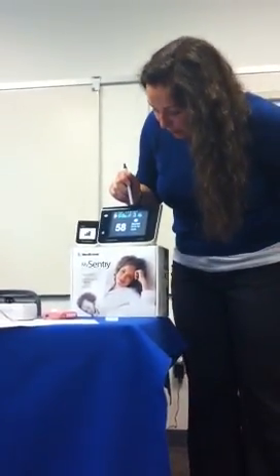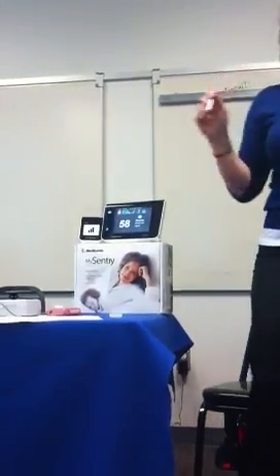This first one, what it will actually show is the hours until your next calibration, and that also goes in colors of green, yellow, and red. So it'll say, okay, we have 4 hours until that next sensor calibration is due. This can be really helpful, especially at night. Say, I want to make sure that I calibrate before bed because I don't want to get an alarm in the middle of the night. Because who wants that? I don't want to wake up. And then you'll also see how many days until you have to change your sensor. So it'll say, okay, you have 1 day left, 2 days, and it'll even go down to hours. So it'll say, okay, this many hours until you need to change that sensor out.